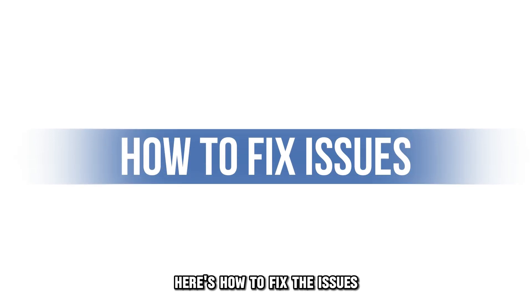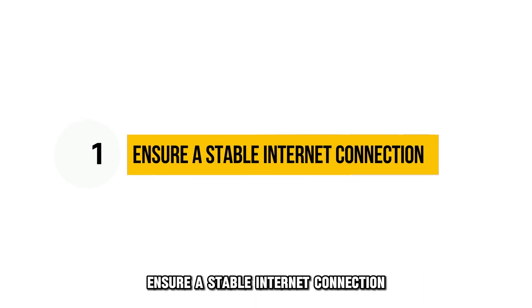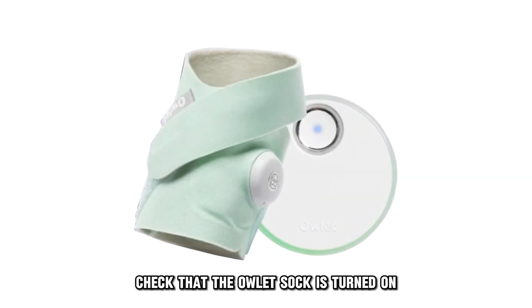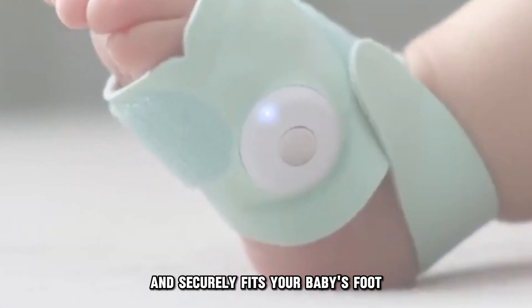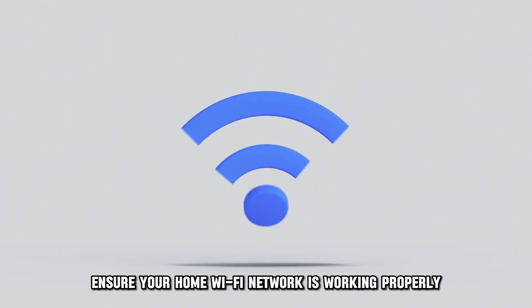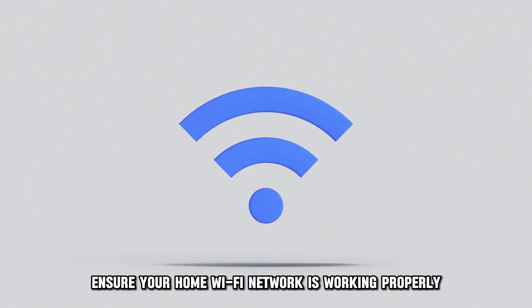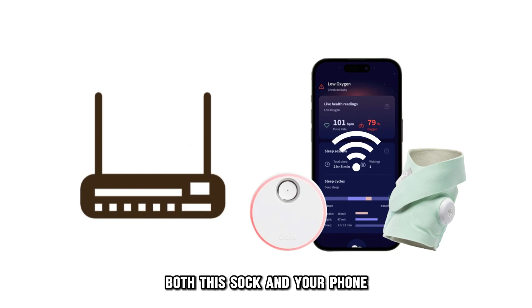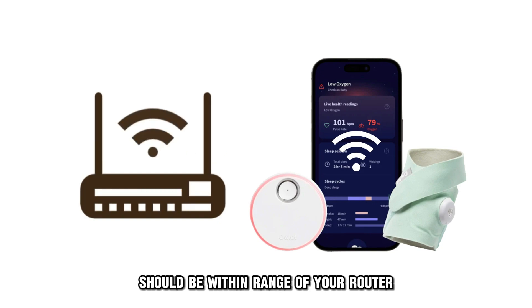Here's how to fix the issues. Ensure a stable Internet connection. Check that the Owlet Sock is turned on and securely fits your baby's foot. Ensure your home Wi-Fi network is working properly. Both the Sock and your phone should be within range of your router.